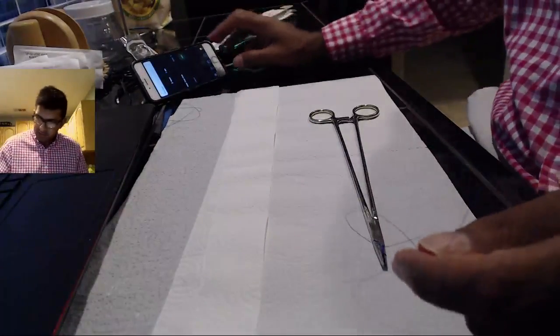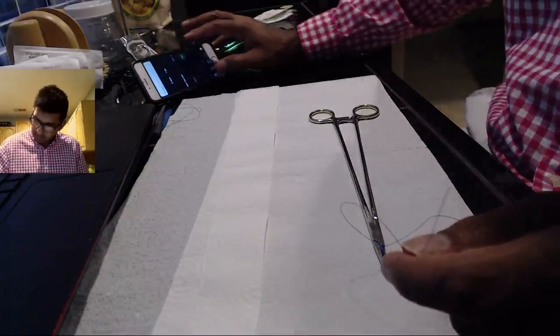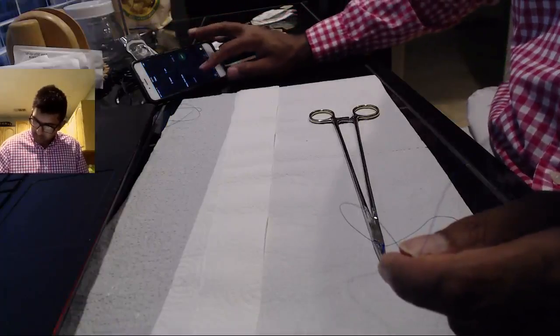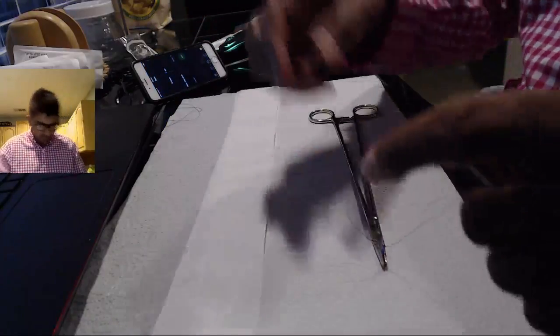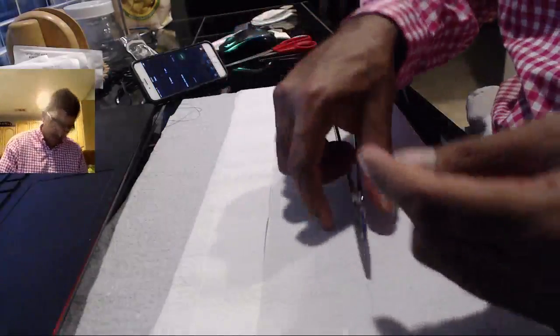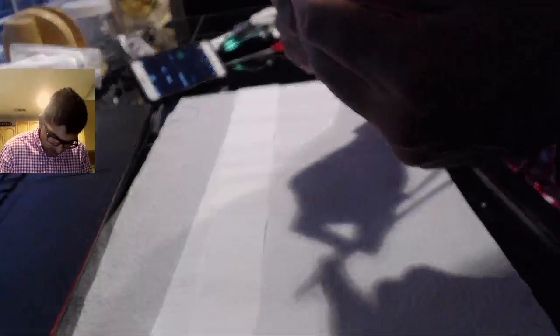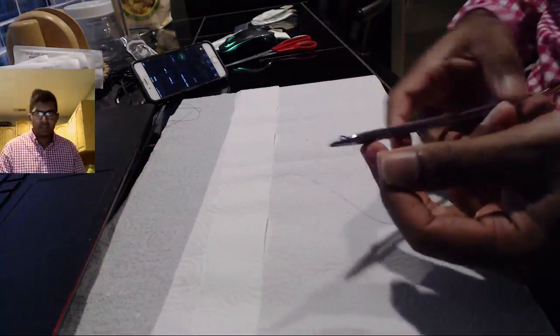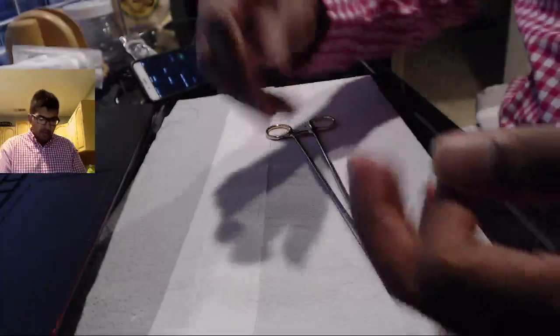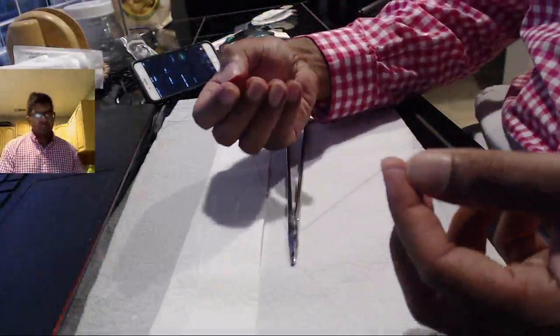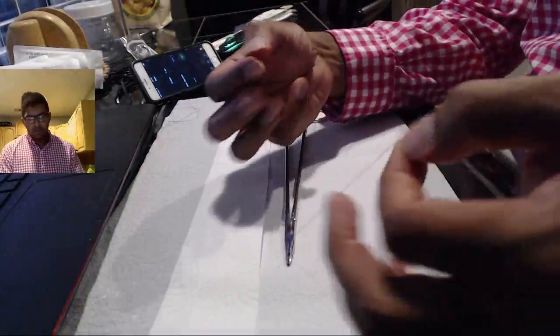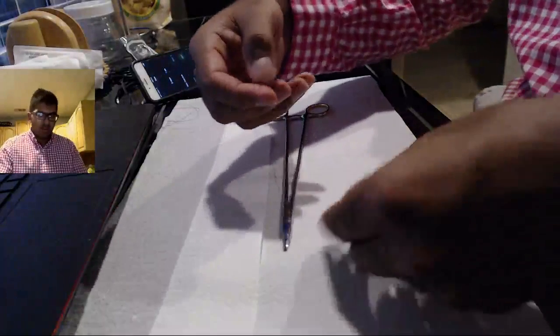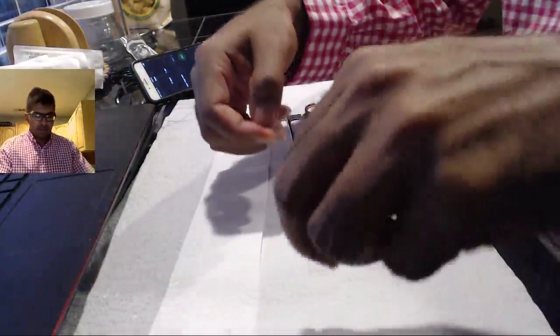Seventeen knots. And again, looking at them. I know it's hard for you to see, but I'm looking at them and they're all brought down. There's not space in between the knots. There's no air knots. And this is a successful tie. So as you're learning, just remember, work on this first. Then you work on getting speed.